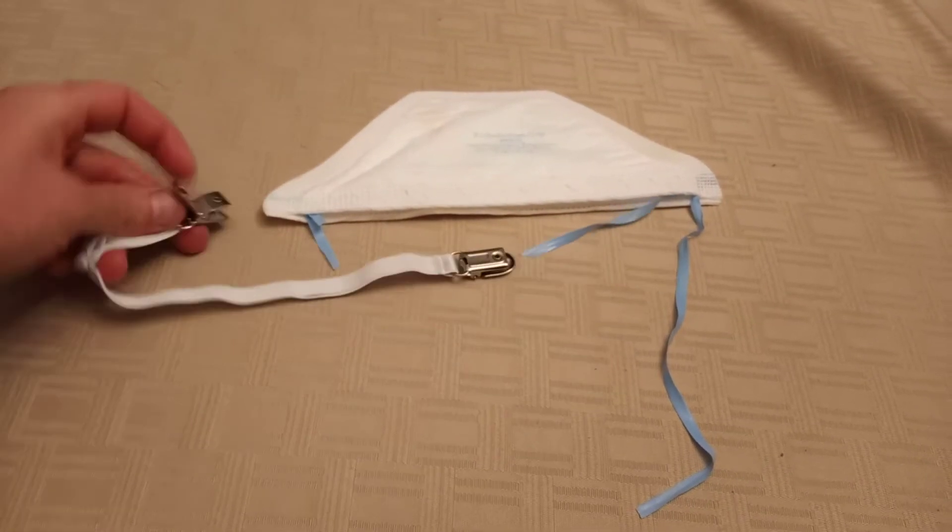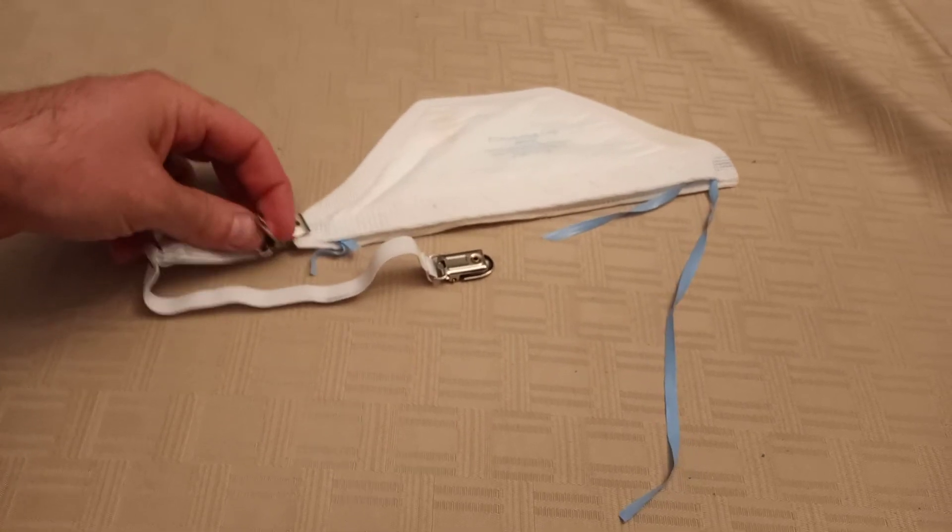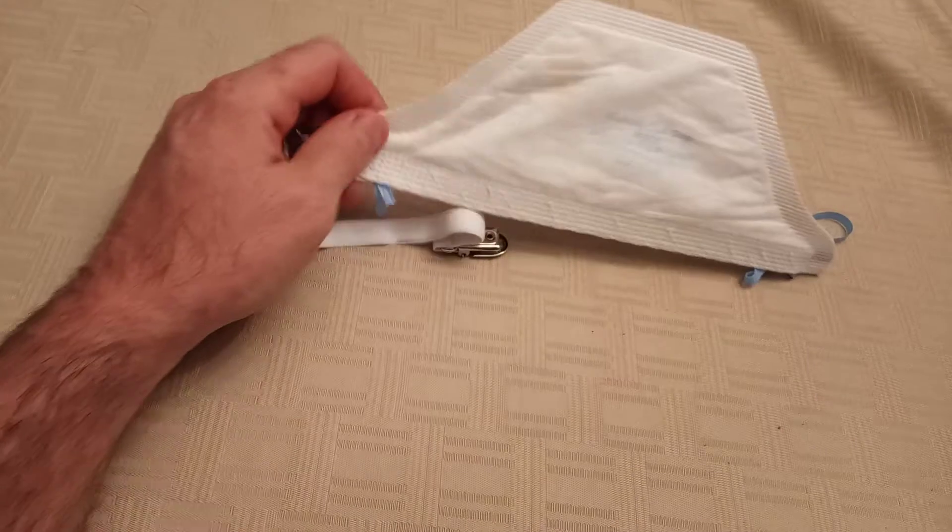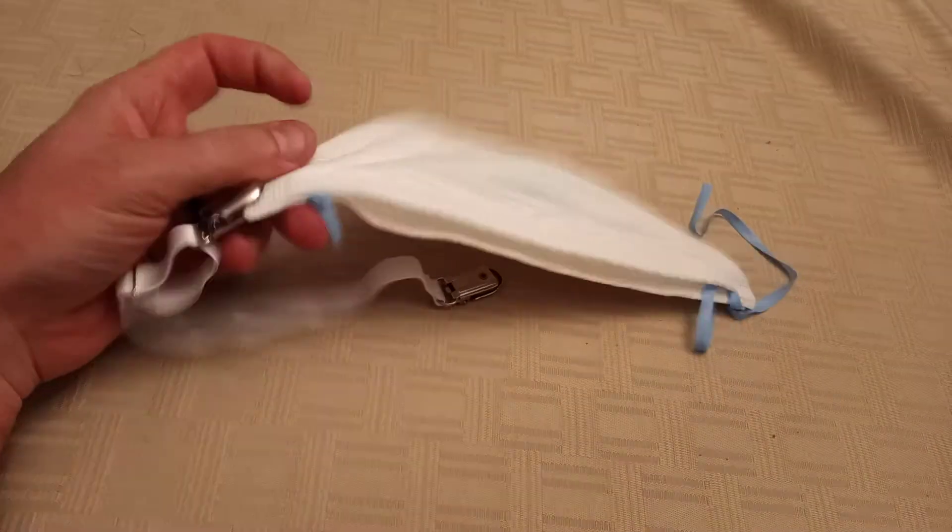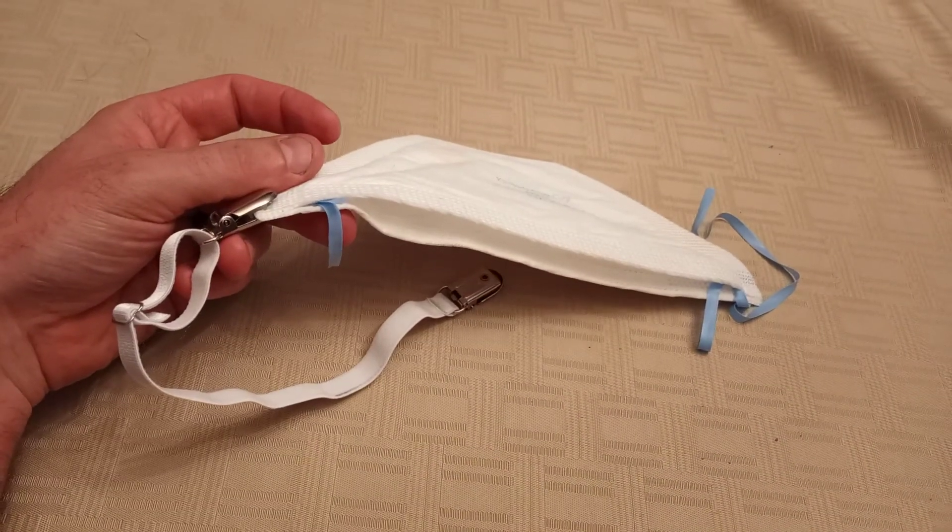Reusable. Clamps on. Grabs tight. Fits around your head. Easy. Cheap. Try it out. Post a link in the comments. Thanks.